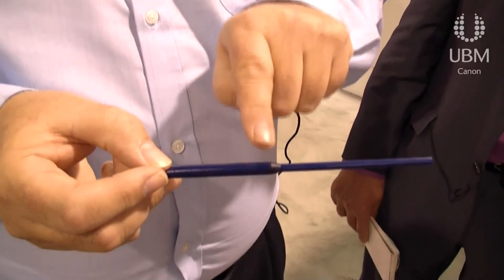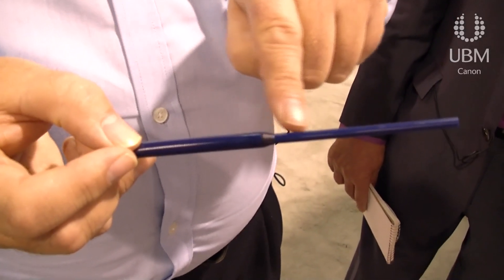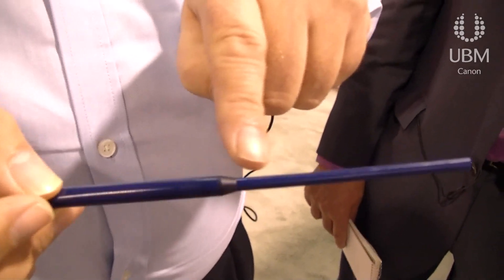It is our patented molding process. Here's our molding technique right here. The length is adjustable, as is the flexibility of this joint.